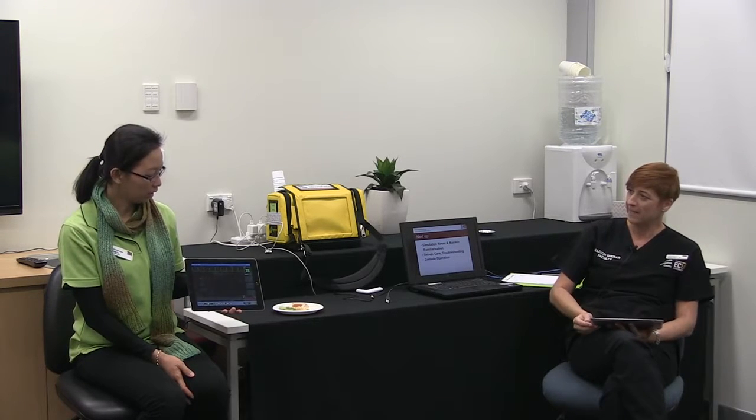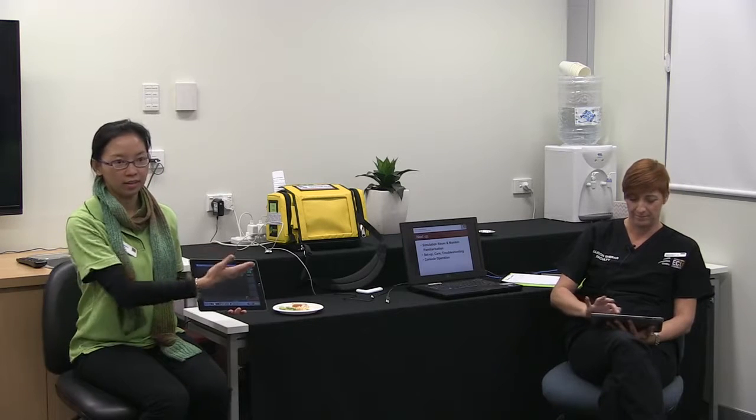Holly is currently holding the iSimulate in monitor standby. If I bring up a couple of heart rates, I can only see whatever Allie put on and allowed me to see — like whatever you want the student to see.